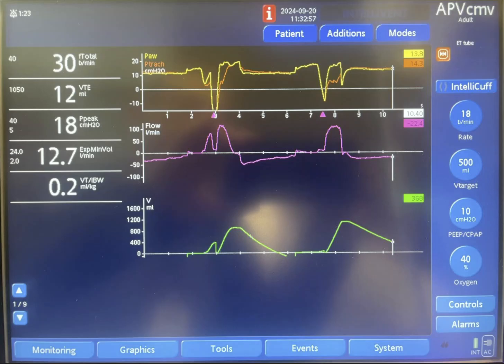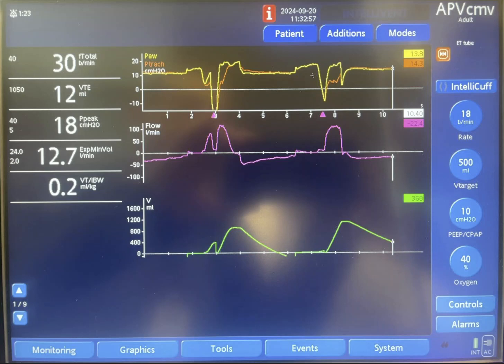You can see the tidal volume goes below the zero line because we expelled around 800. The same pattern happens again — there is a ventilator-initiated breath given with roughly the same pressure as the last one, maybe slightly lower, because that previous breath resulted in a higher tidal volume, so the pressure regulation starts coming down.